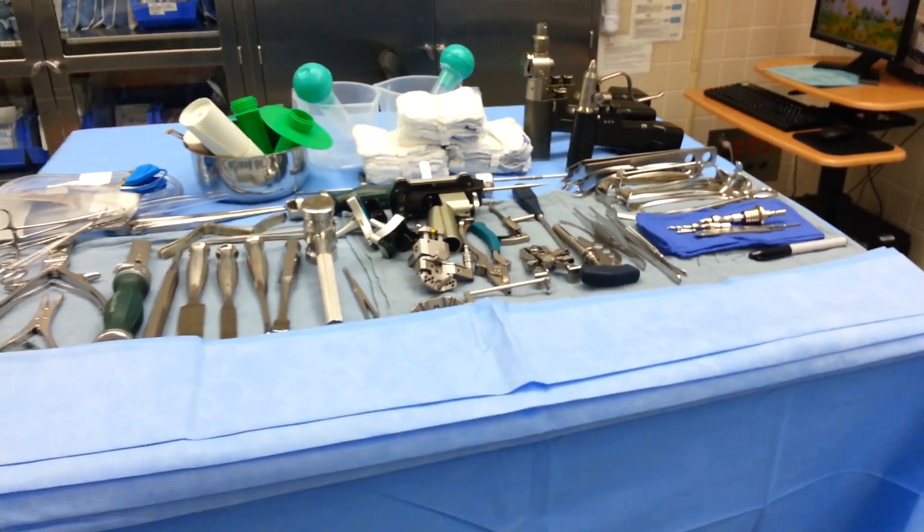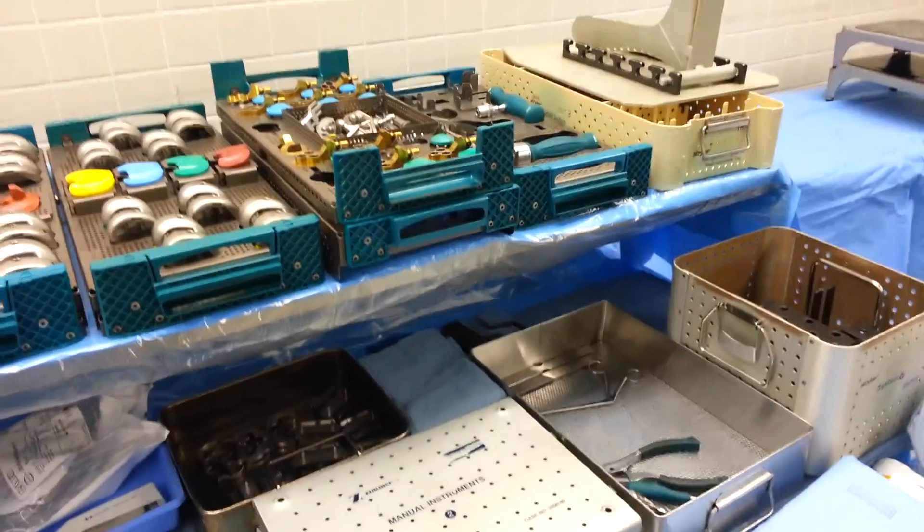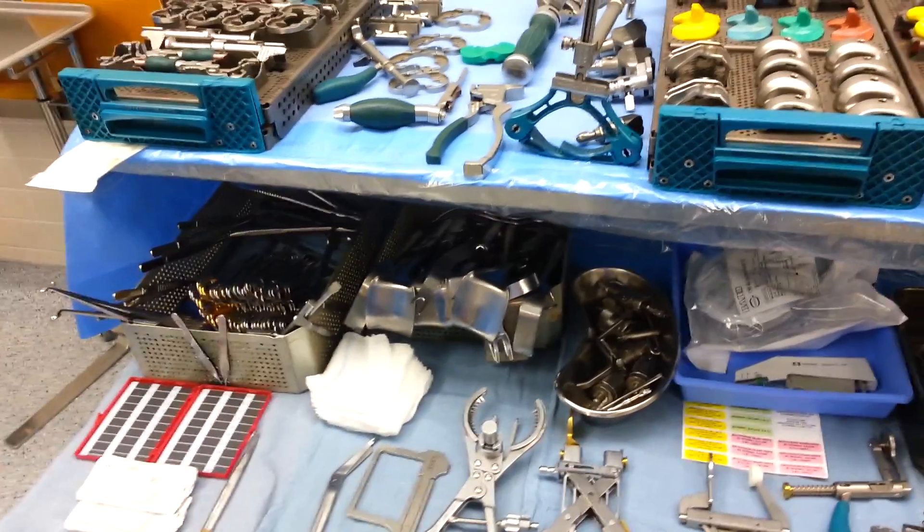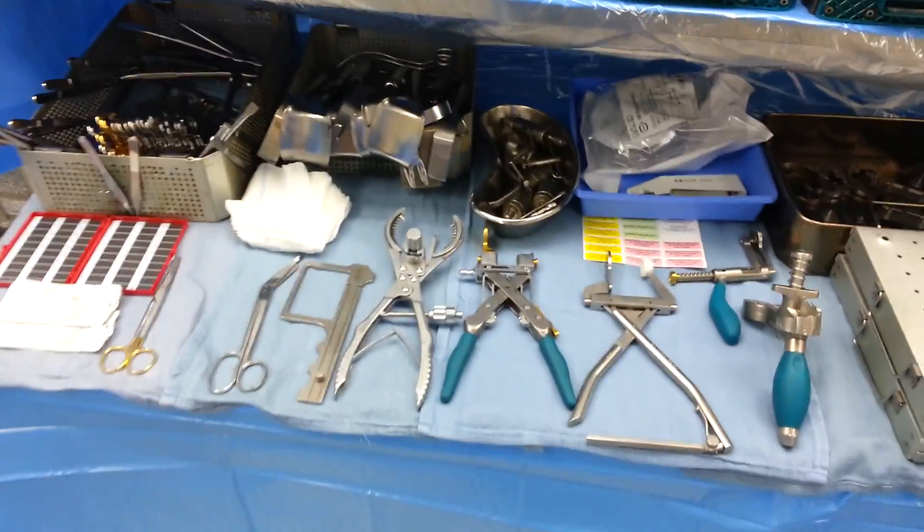So that's the gist of the basic setup — that was about an 11 minute long video. There's a lot more to the setup obviously than this; this is just a quick overview of the trays. If you're learning this system and how to set it up, this is a good way to get started. I'll try to have some more videos later, and I hope that helps.